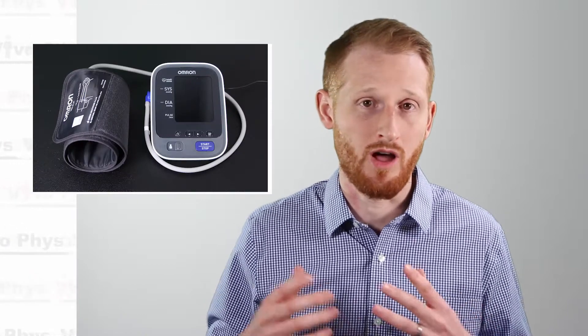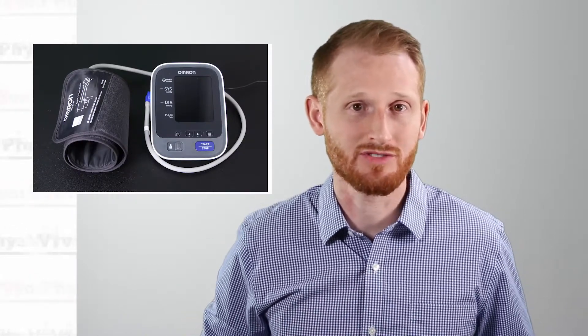Automated at-home style blood pressure cuffs are quite affordable and pretty easy to use. In this video, I'm going to be using an Omron blood pressure monitor with an Omron EasyWrap blood pressure cuff to show how to do this. But regardless, the general steps are going to be the same for pretty much any at-home style blood pressure cuff.